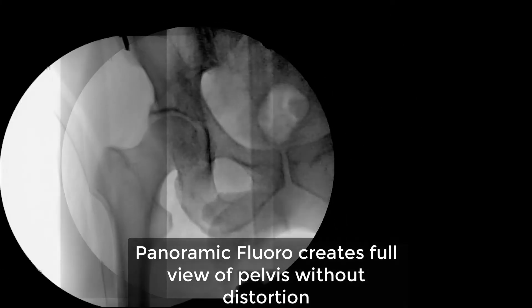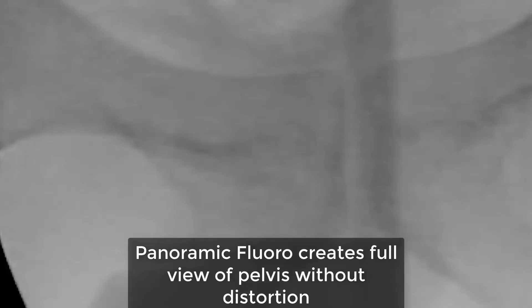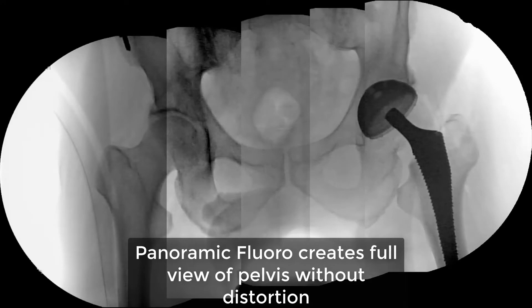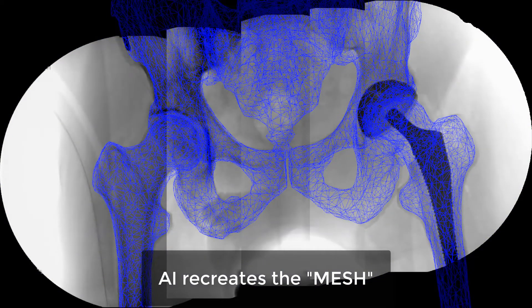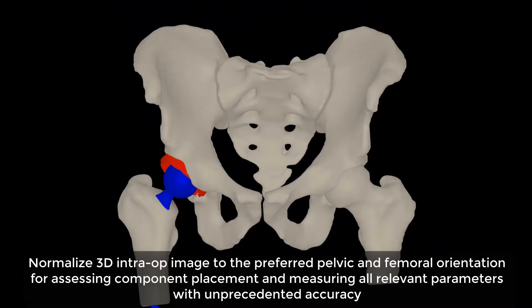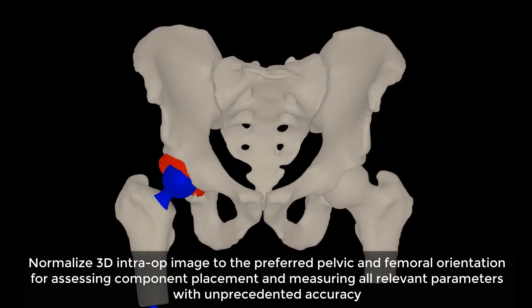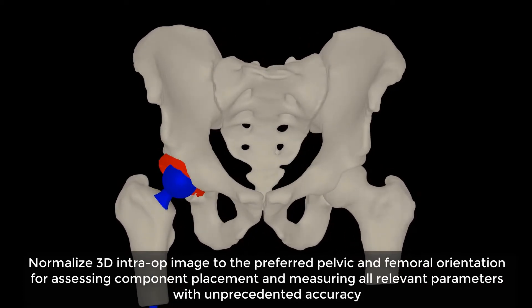The 3D mesh model will match intraoperative images to pre-op standing pelvis views. This helps surgeons to account for implant orientation while visualizing spinal-pelvic relationships as well as femur position.